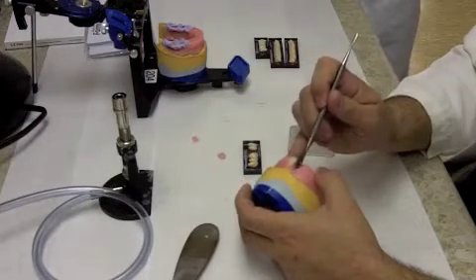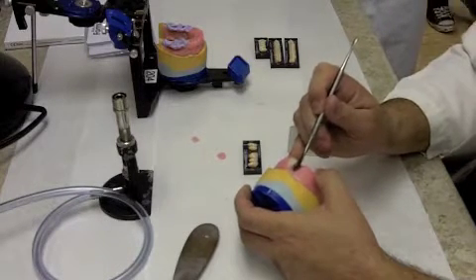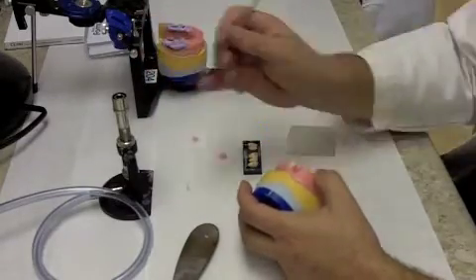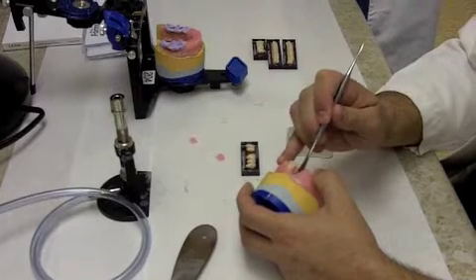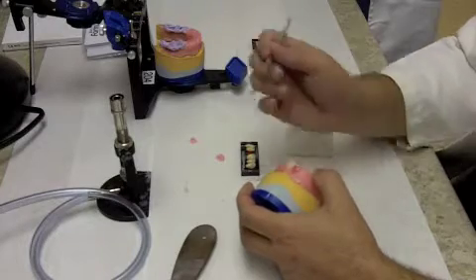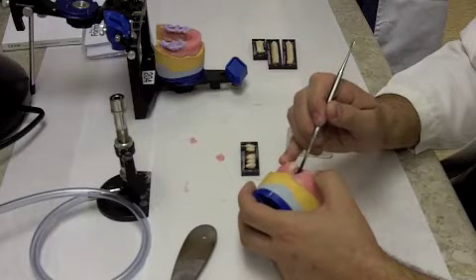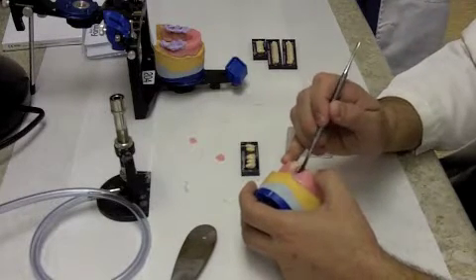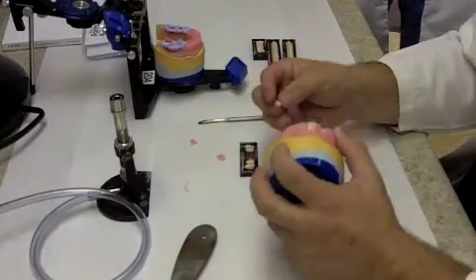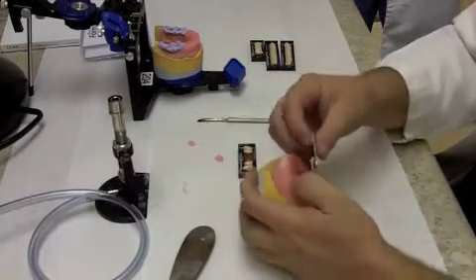The key here is you want to go through and heat the wax in the areas where you might be manipulating the tooth. You want the wax to be soft — not liquid and not hard — because you want to be able to freely move the tooth. If you start moving the tooth and haven't heated things appropriately, you'll hit something and it causes the tooth to shift in a direction you don't want, sometimes causing malpositioning or pushing another tooth out of the way.